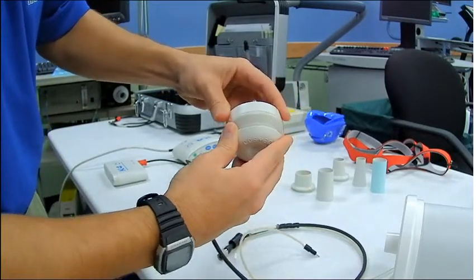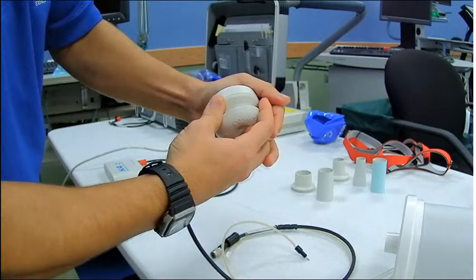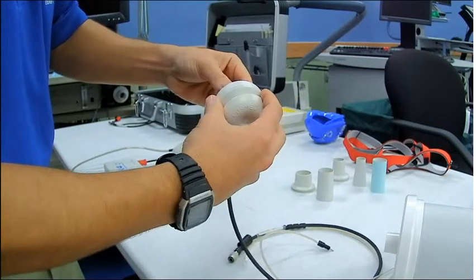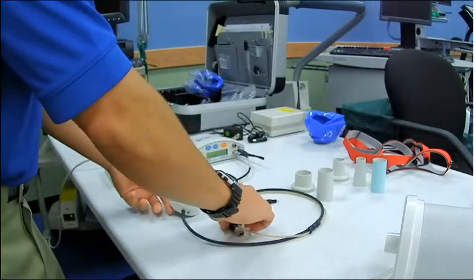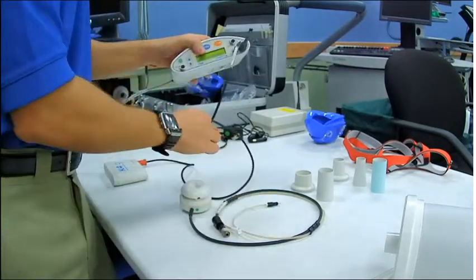And now this part can get a little bit tricky, because this top part will fit right on easy. But when you go to put an adapter on, if you haven't left enough space underneath the flap of the turbine or the fan, it won't connect. And so you'll just have to pop the top back off, give it a little bit more room and connect it.